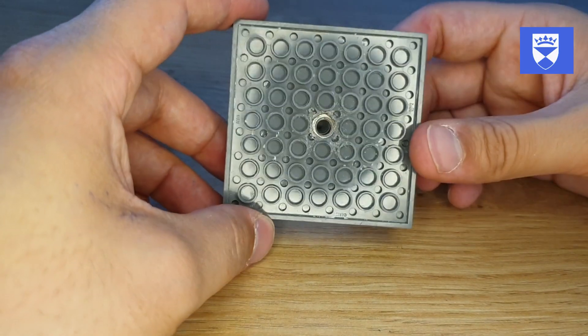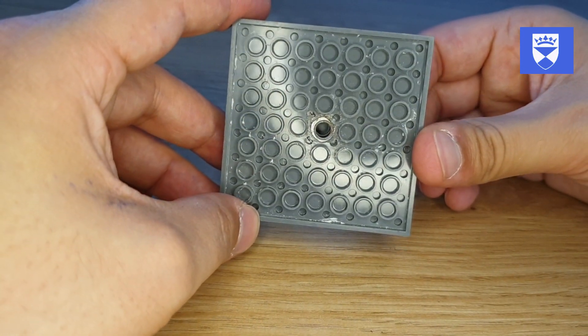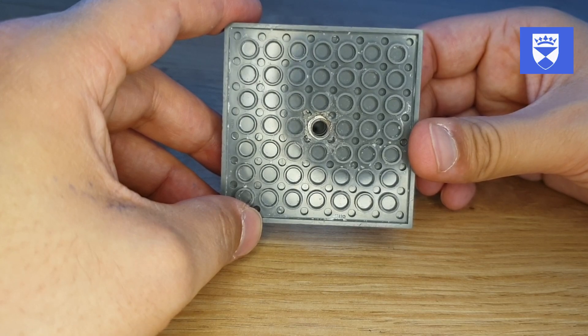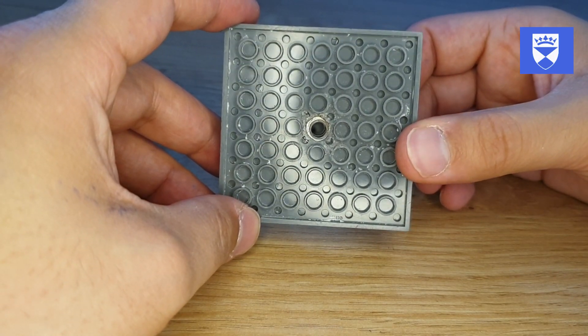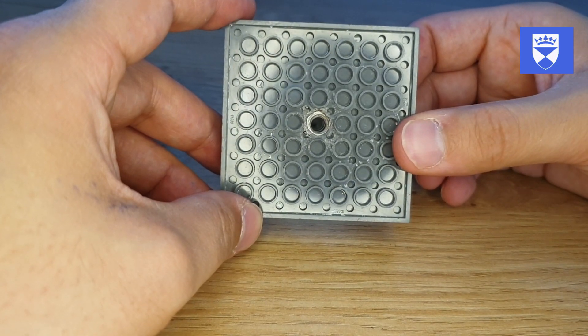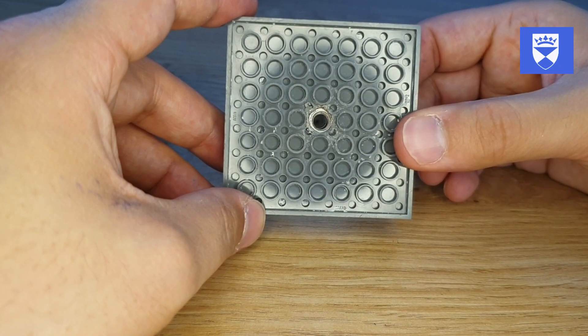On the other side here you can see that we have affixed a nut within the unit. This is important as it allows us to use this unit intra-orally inside one of our mannequins.